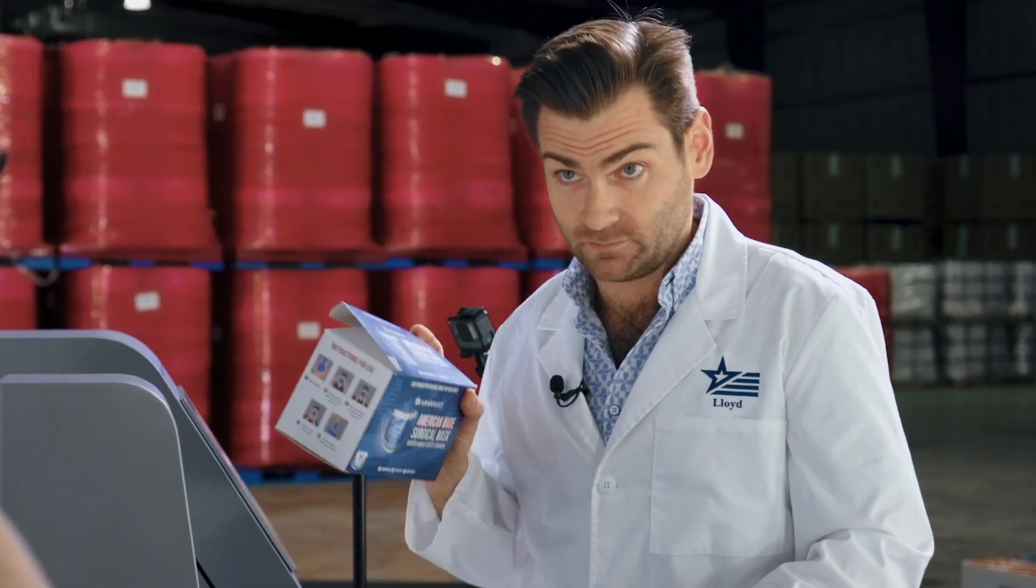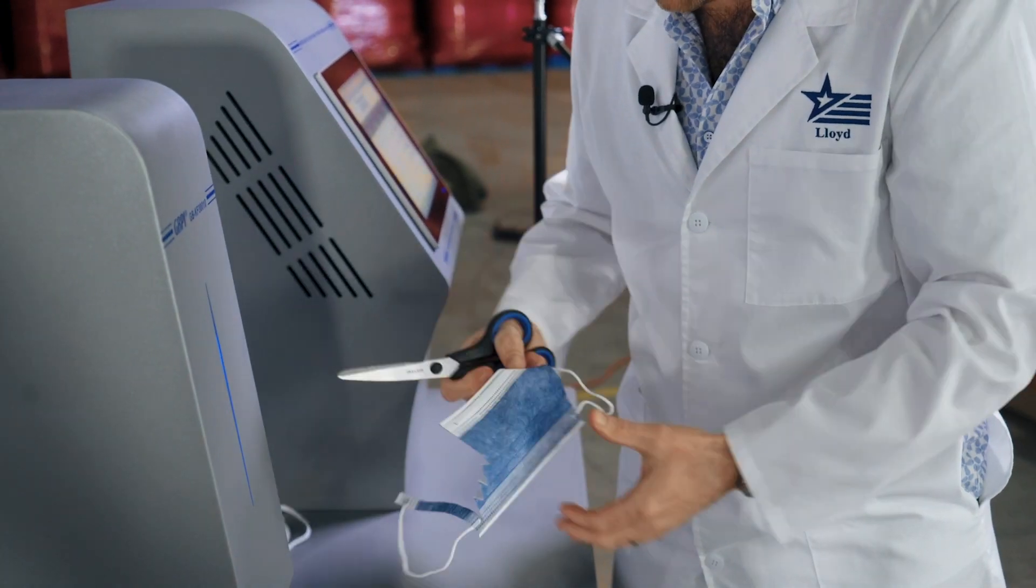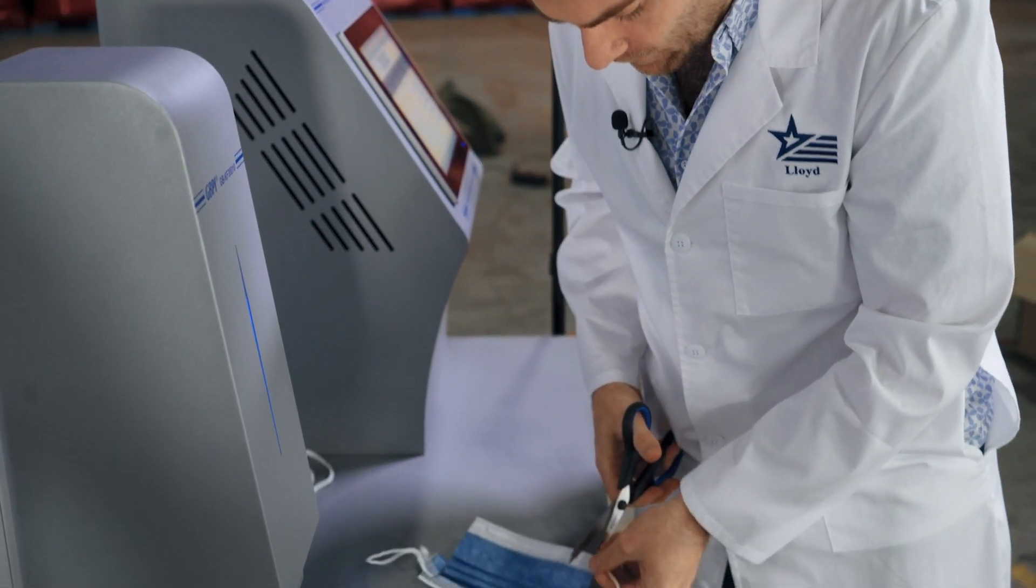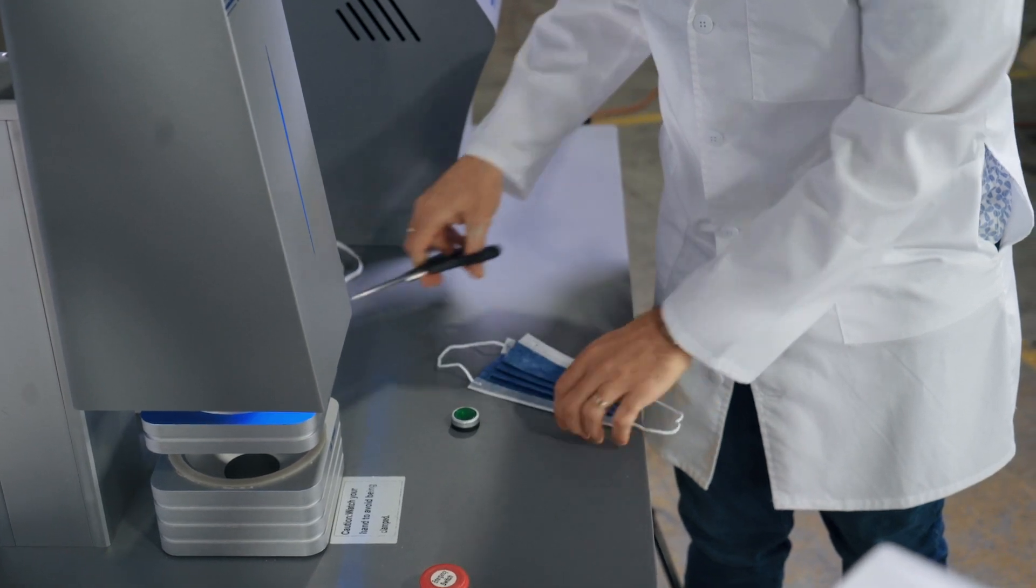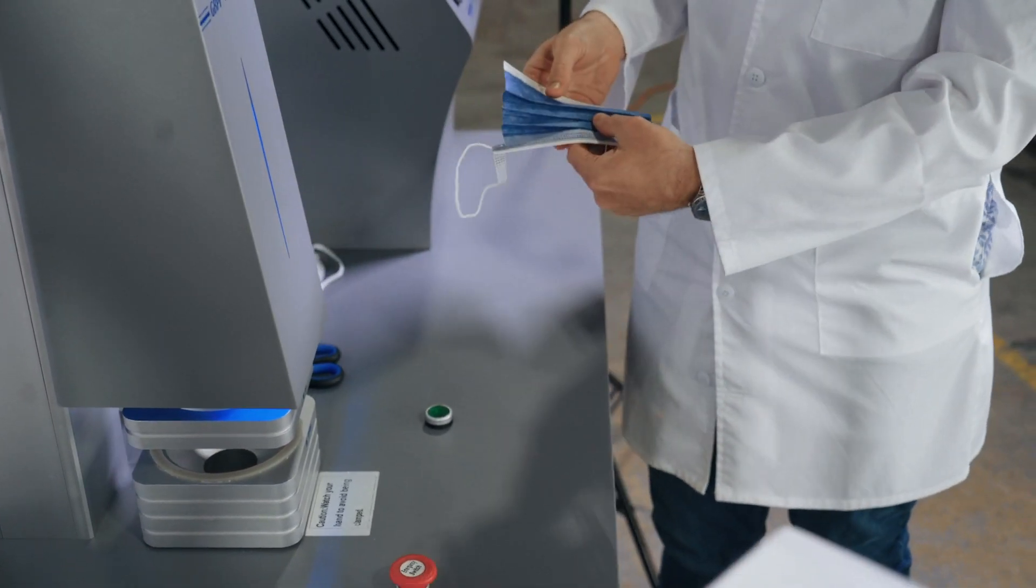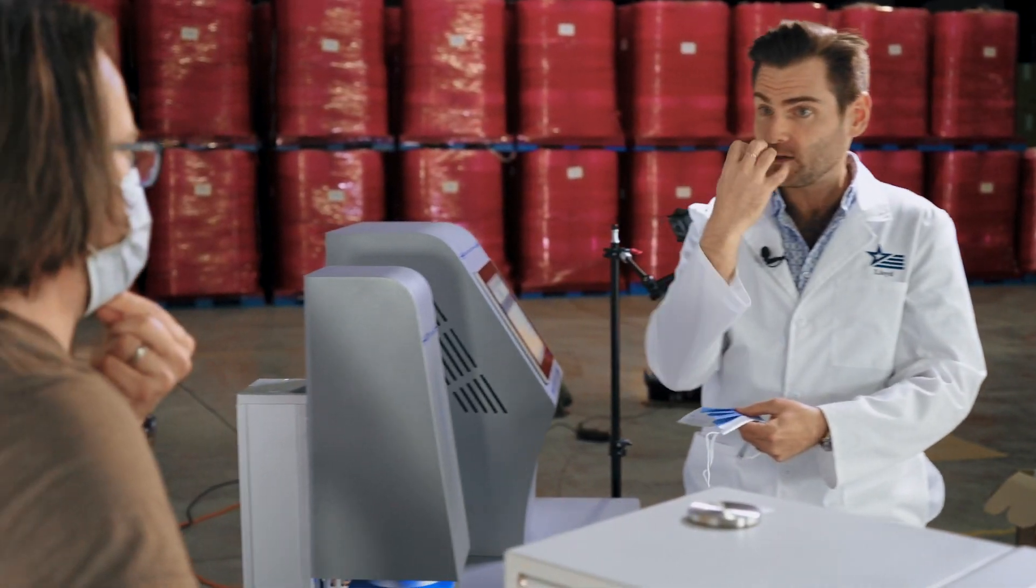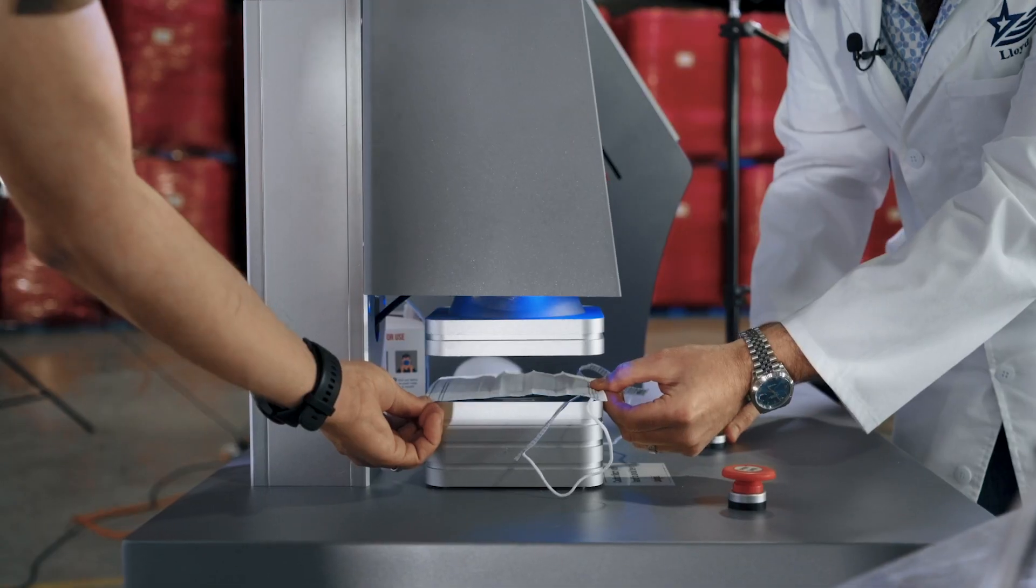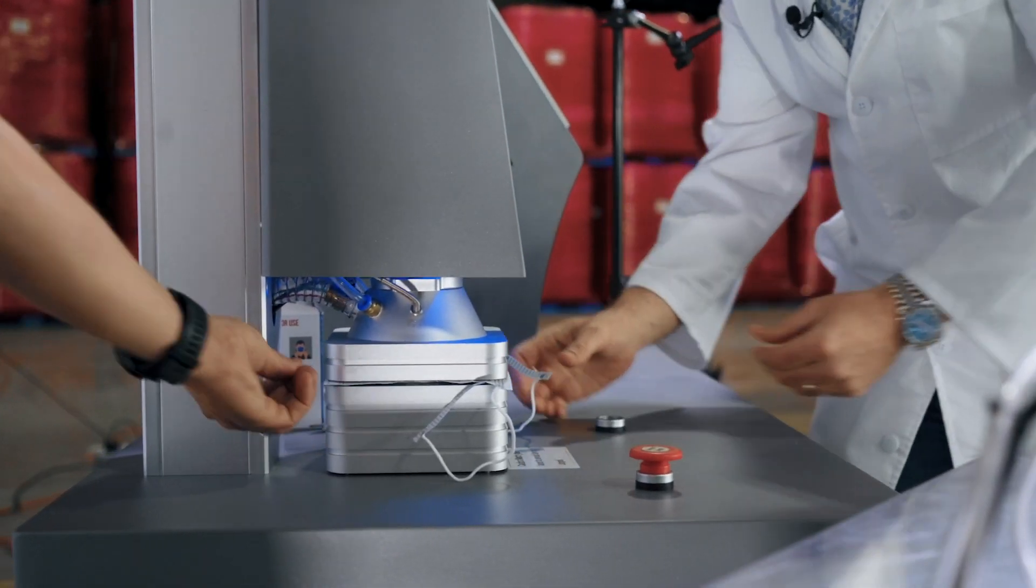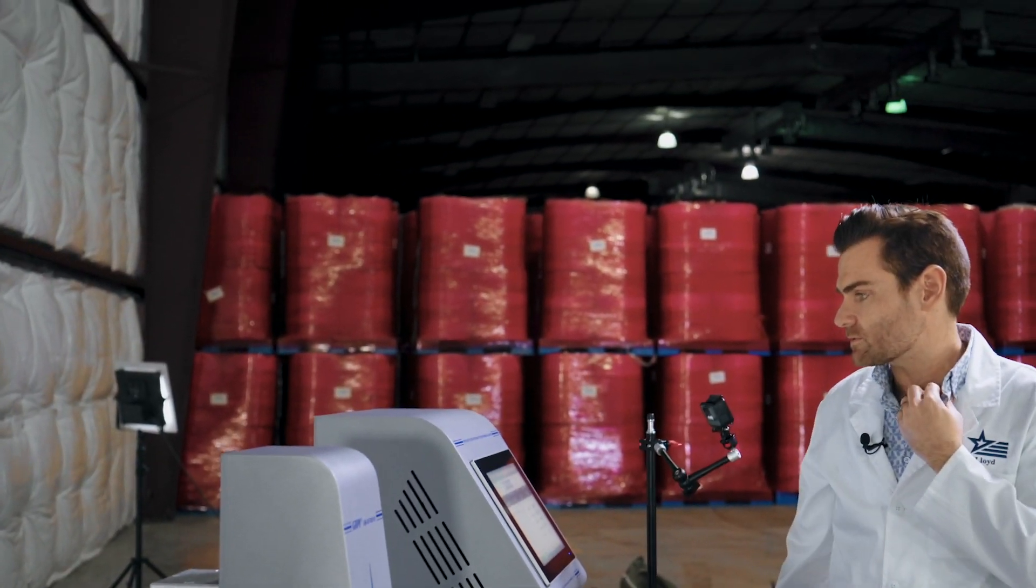So we're going to start with our masks here. So what we're doing is we're actually stretching everything out, so it's more fair than if you were to just throw it right on as it is. Yeah, because if you throw it on as is, it's got this area that doubles up. And it's also more accurate for how you actually wear it. Because looking at your face, it stretches out. That's the design for it. So I'm just going to stretch it out like this. All sides on there. And now it's starting to push things through.